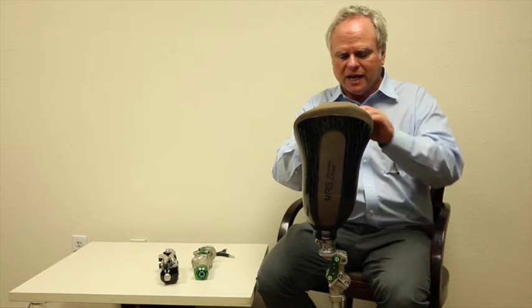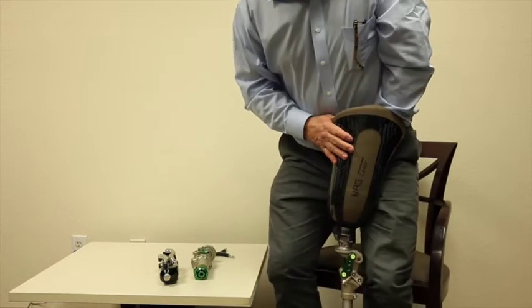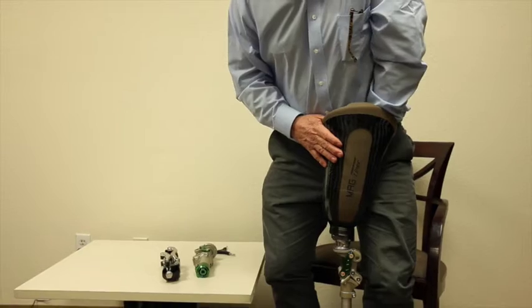When I say you want a lot of stability, what happens is when they weight load, it then flexes the stance flexion and puts all of the alignment into a much more stable position.